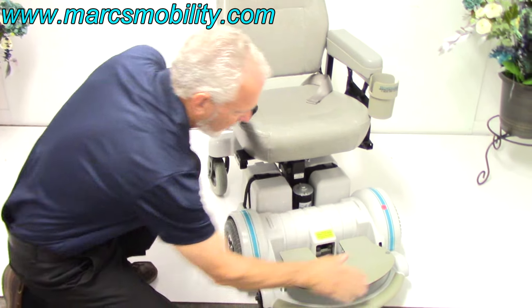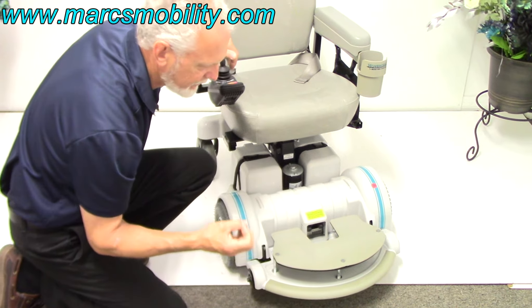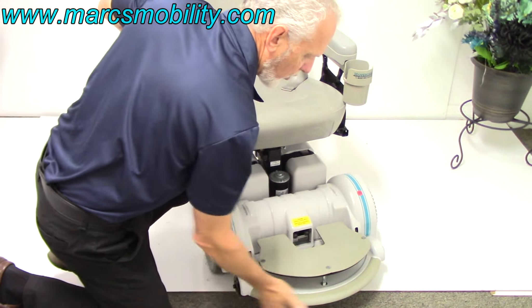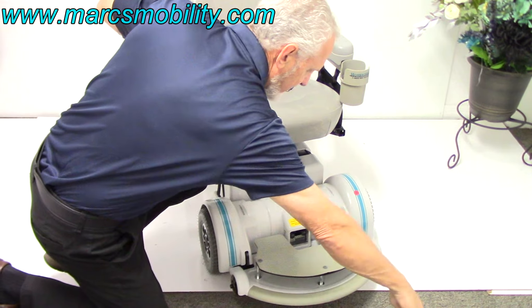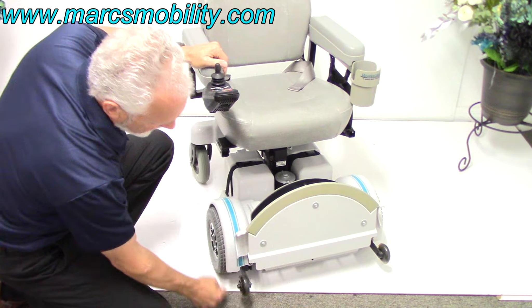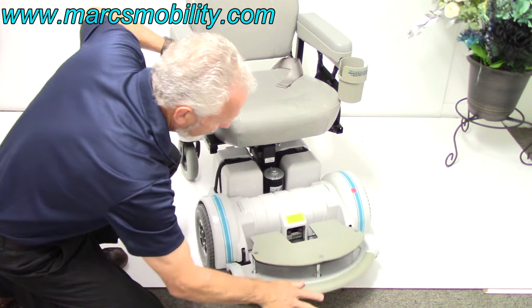You've also got a rounded foot plate, which is very popular with Hover-Round — that's their claim to fame. You can go around a corner because of the round foot plate; it's not a straight-out foot plate. And you have your anti-tip wheels right here, and you're covered by the foot plate.